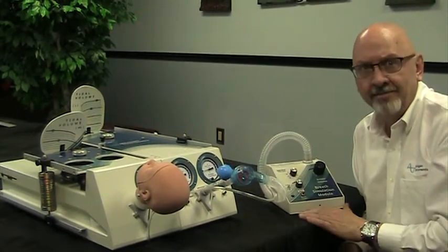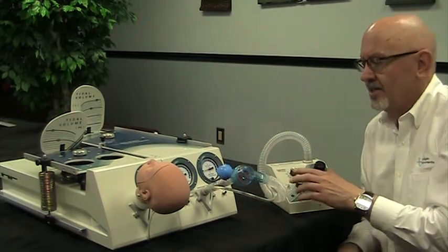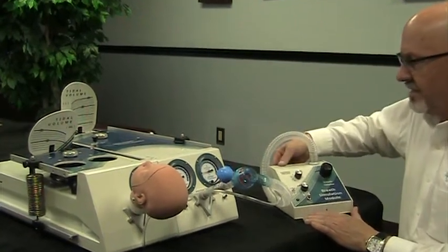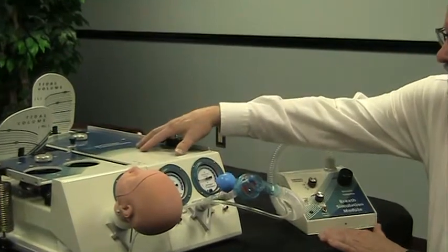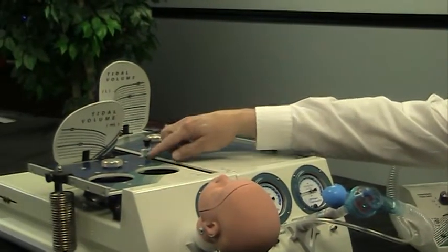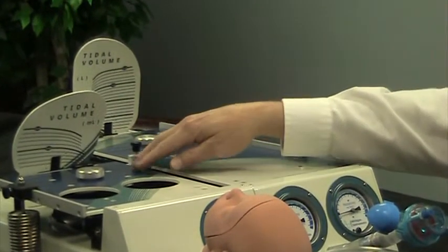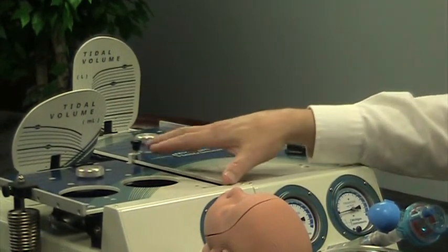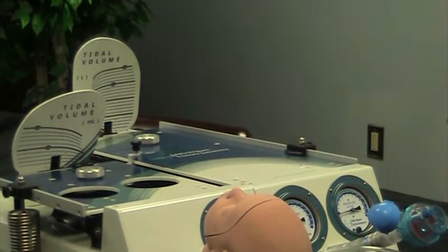Yes, you can. What I've set up here is using the BSM to drive the adult lung. I use the lung coupling clip to lift the infant lung, and that lifting of the infant lung and letting it fall creates that spontaneous breathing simulation on this side.